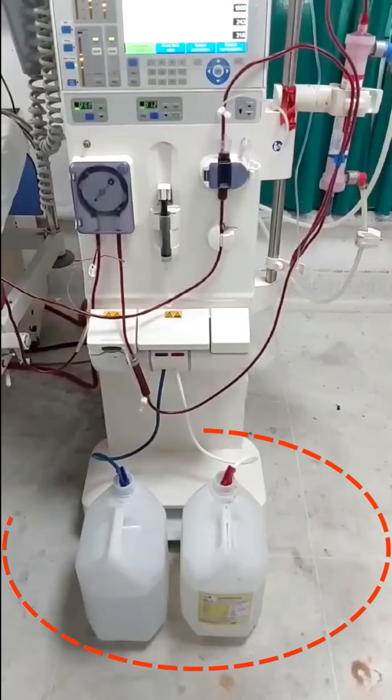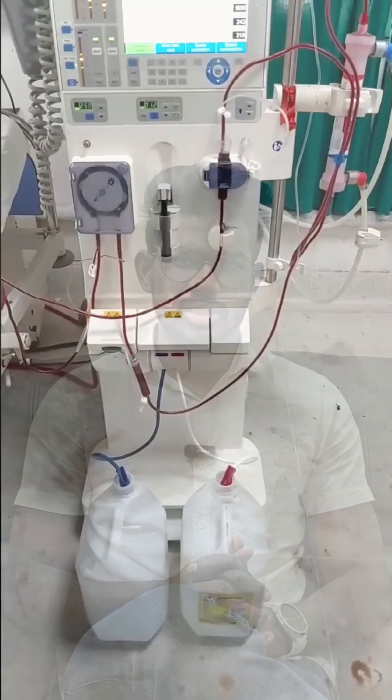Have you ever noticed something odd in a dialysis unit? We stress so much about sterility, but then you look at the acid can and bicarbonate can, and they are just kept open. The first thought that comes to anyone's mind is: bacteria is everywhere — won't it contaminate these cans? And if contamination is possible, why do we allow that compromise? Let's understand the science and logic behind it.